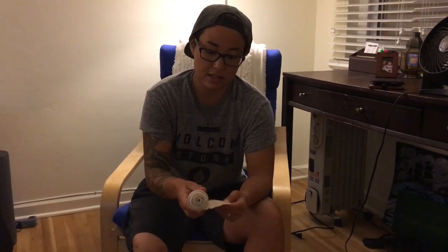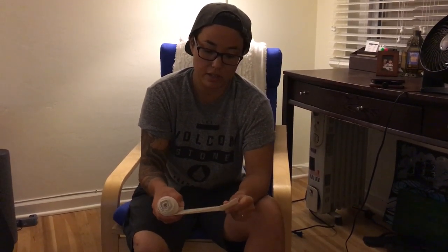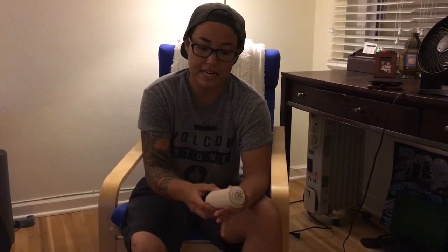Today I'm going to show you how to wrap your leg with an ace wrap. This is to control the shape of your limb — you want it more cylindrical than anything. Get the velcro one or even just a plain one. Never use the pins to fasten it. You're going to stretch it about 20 to 40 percent, whatever you really need. The biggest thing is to not get wrinkles and to cover everything.